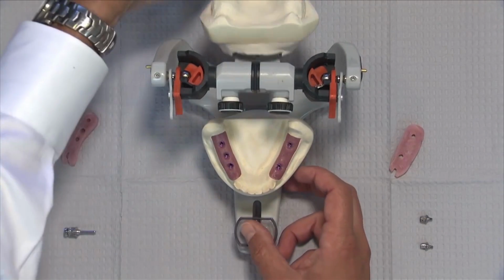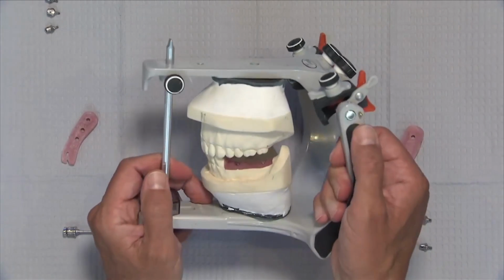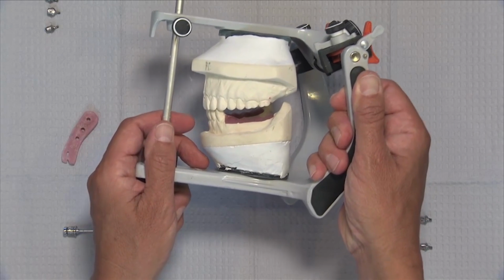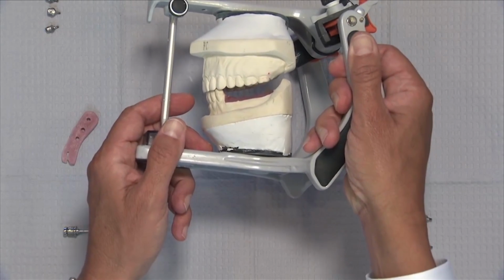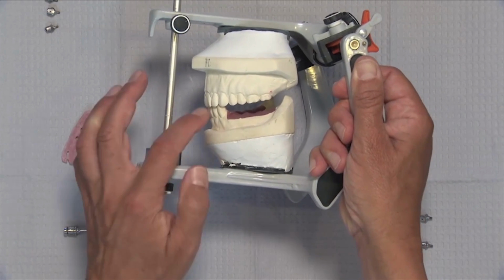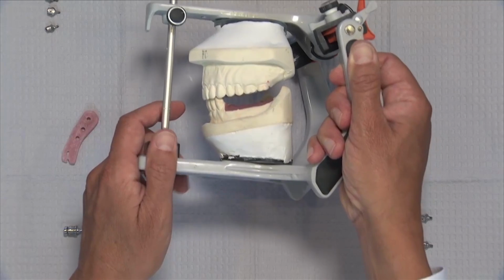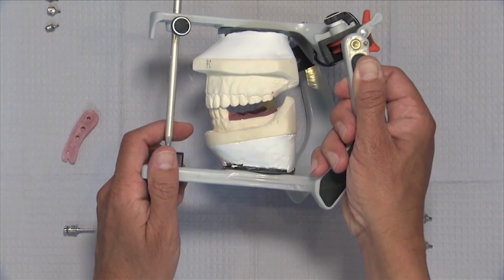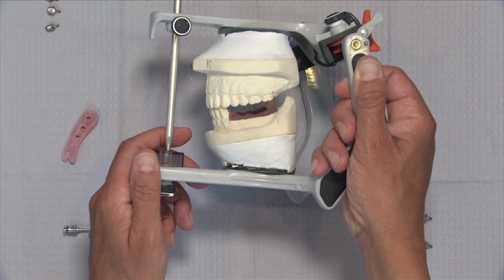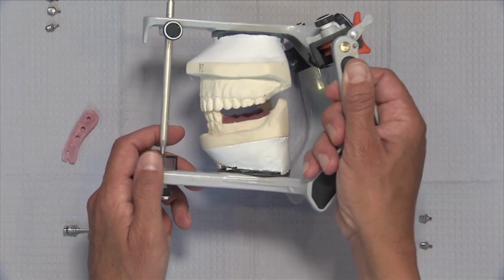And in both of these cases, and this is true for regular crown and bridge cases, but certainly for the implant cases, as we look at this, you can see we just have a lack of posterior support because we're missing all of the posterior teeth. And when it comes time to take a bite registration, some dentists will just inject material between the remaining anterior teeth. Some dentists will inject material back here onto the edentulous ridge and against the teeth. And either way, we end up with a much higher remake rate than we should have because we really don't have a good way to take a nice, stable bite registration.